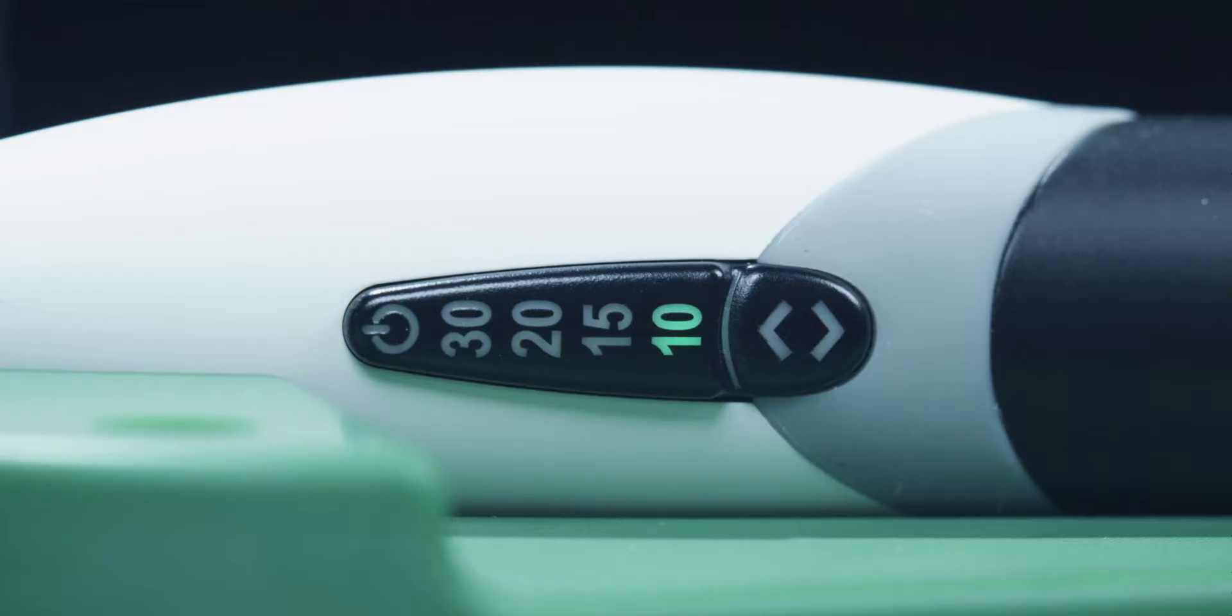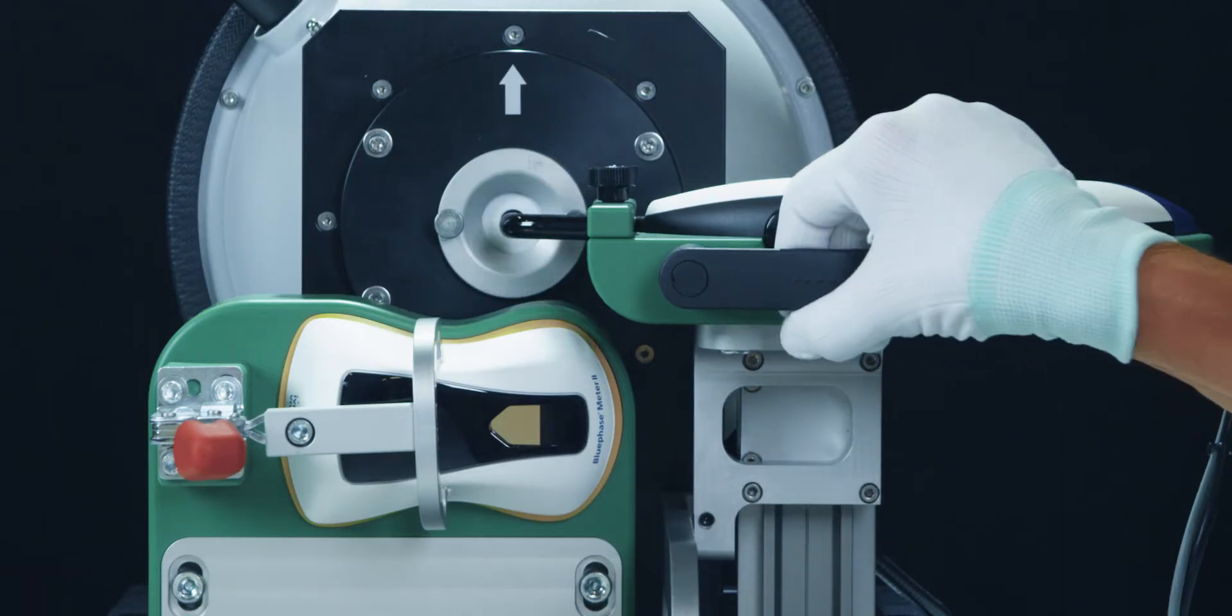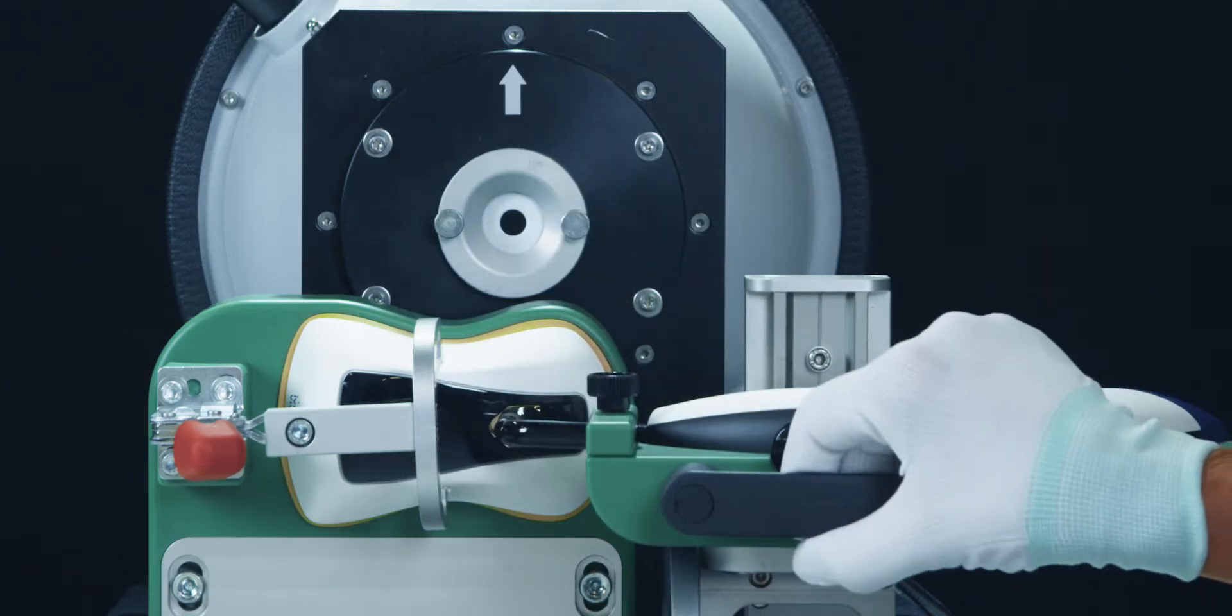Total control of all functions and high precision calibration instruments are our standard and consistently so.